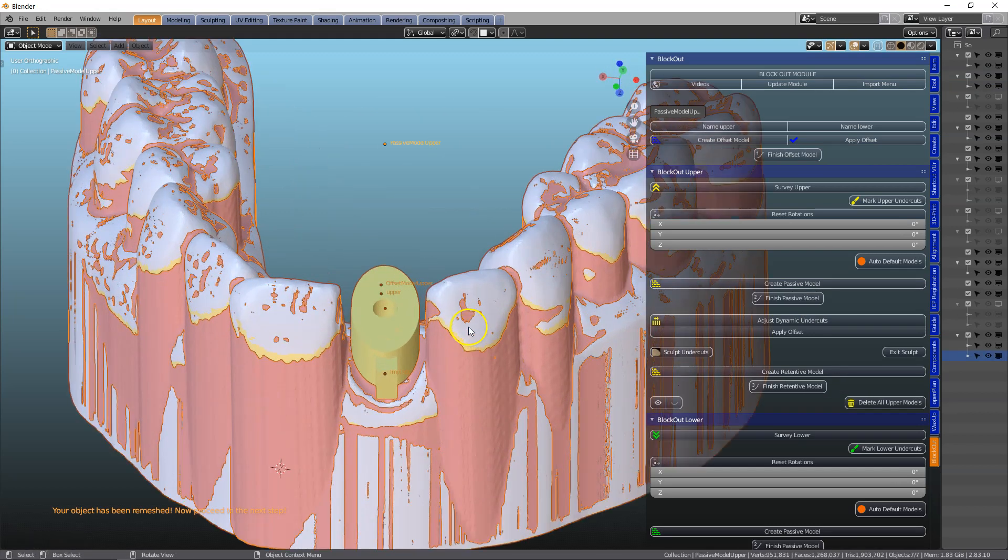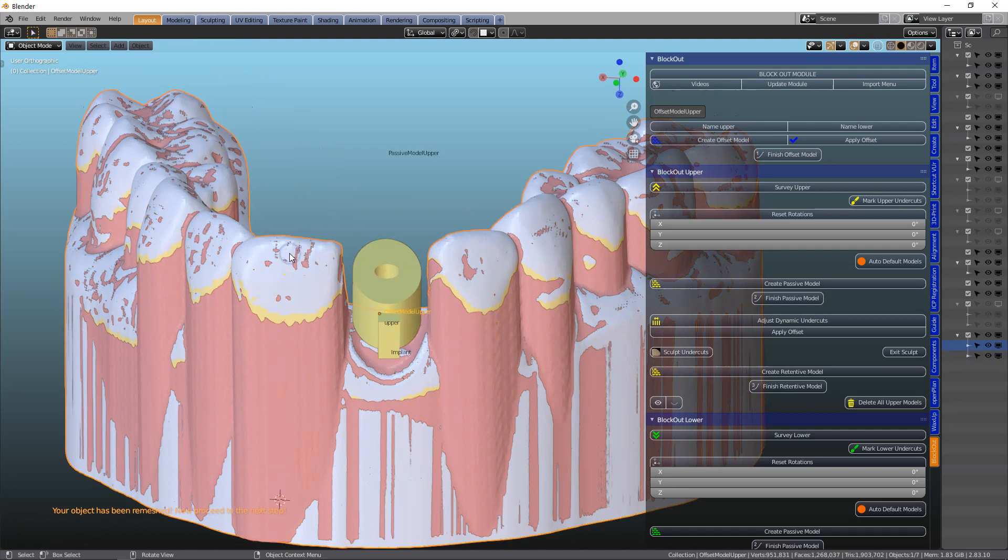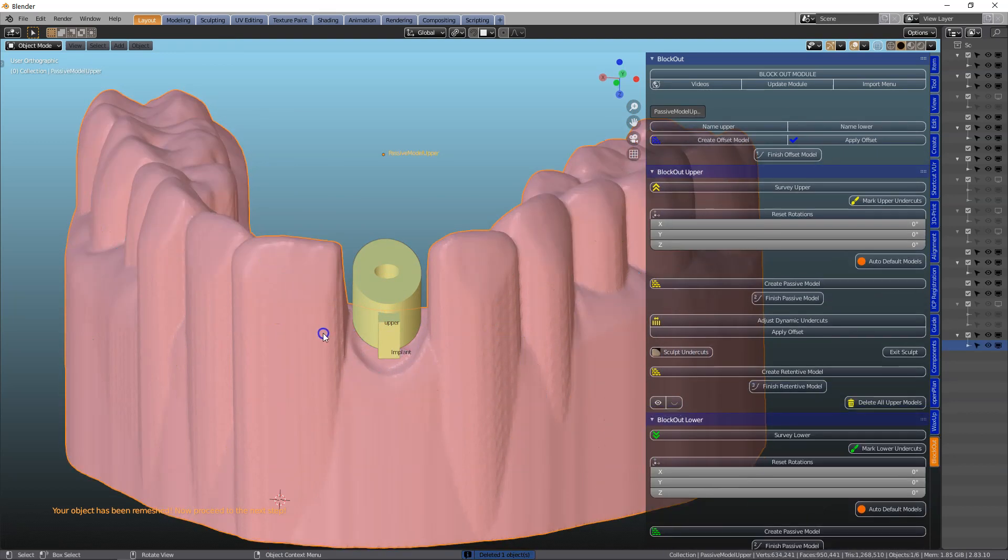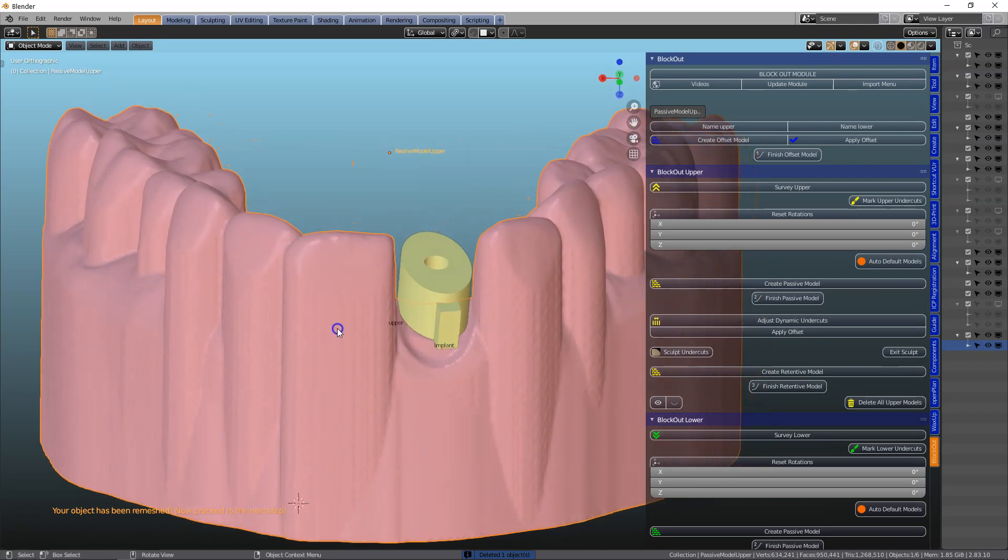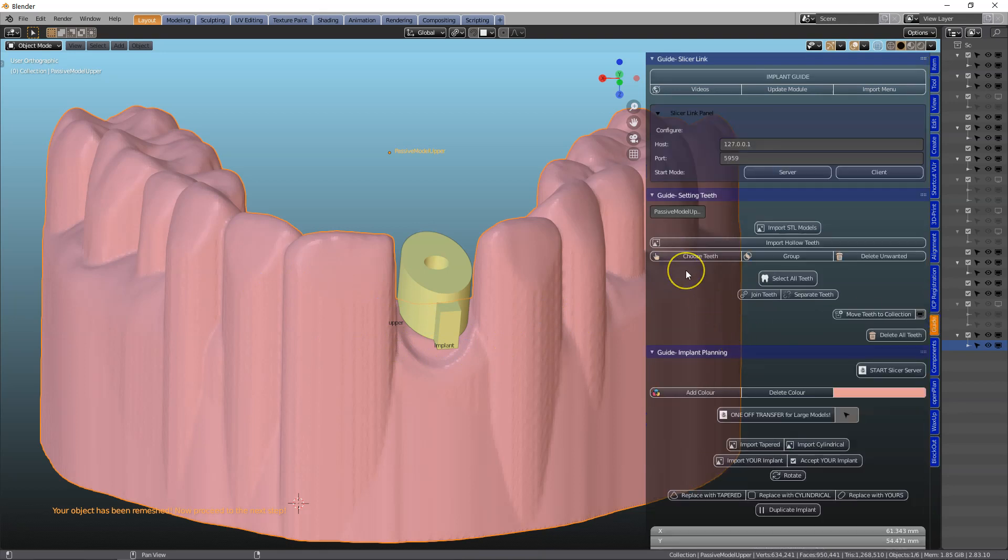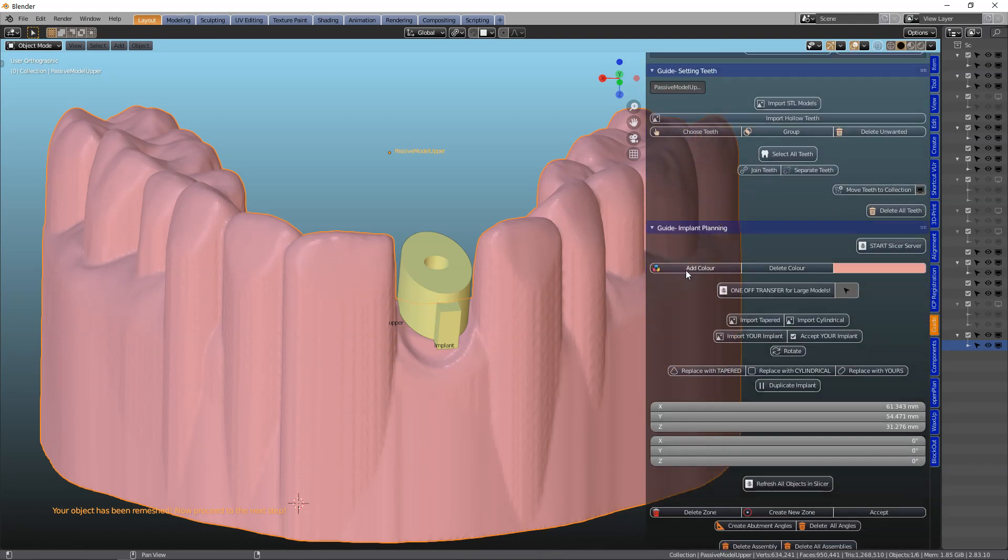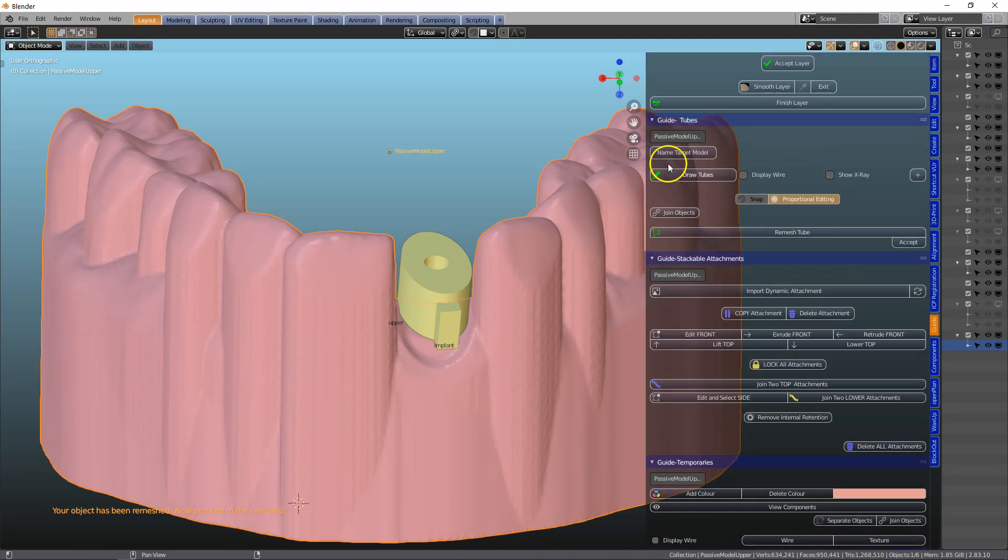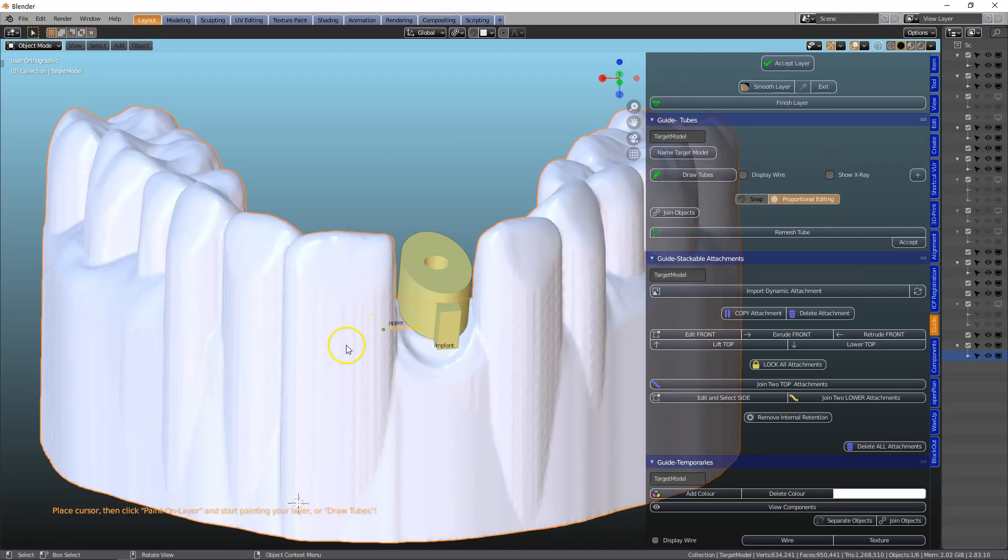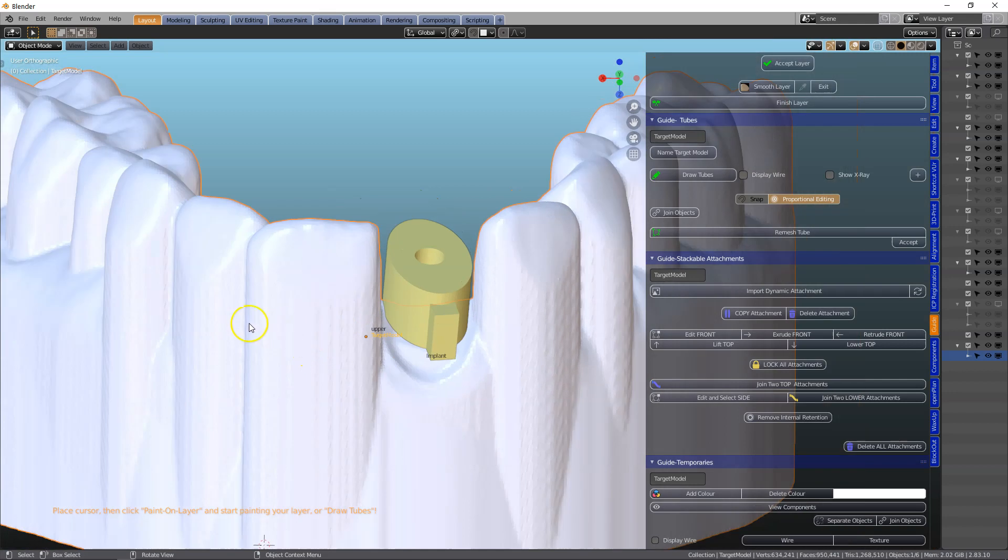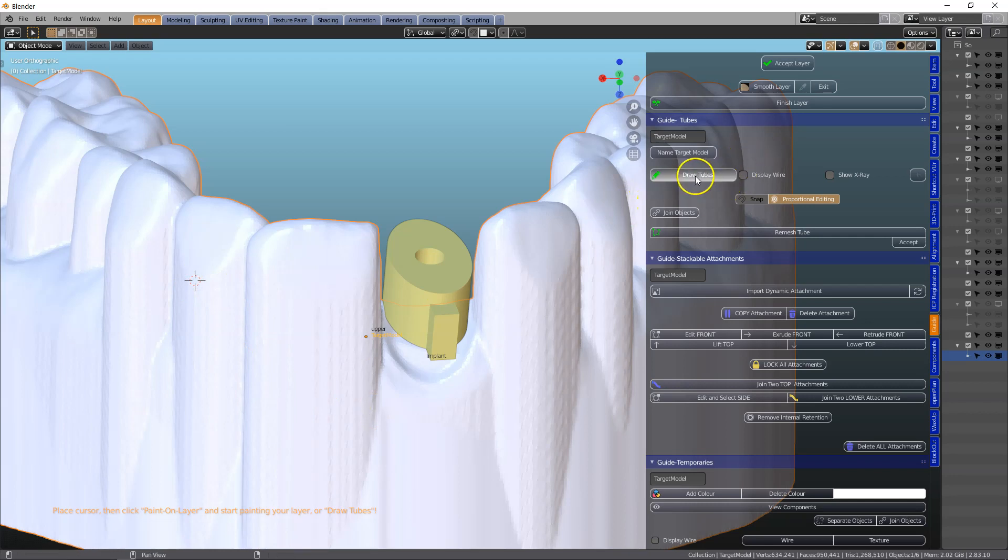Unhide things. This offset model I don't need. I'm going to delete that. This is the one that I want to keep. Note how all the undercuts have been blocked out. So we're going to be making a tube. So that becomes my target model. And notice if we set it exactly over here, it's going to be standing away from our actual teeth. We don't want it to stand. We need a bit of contact as well.